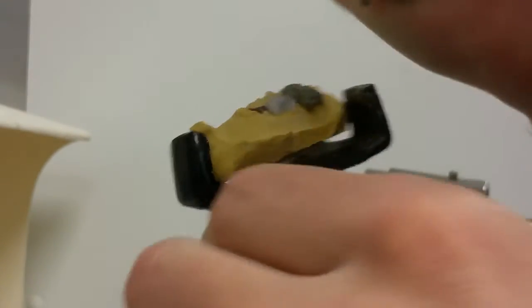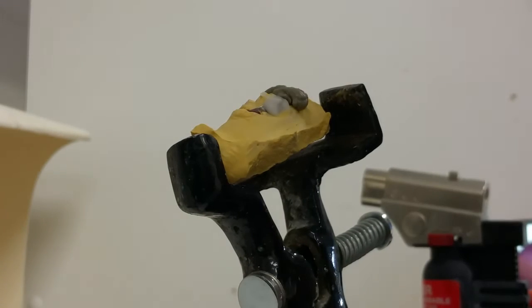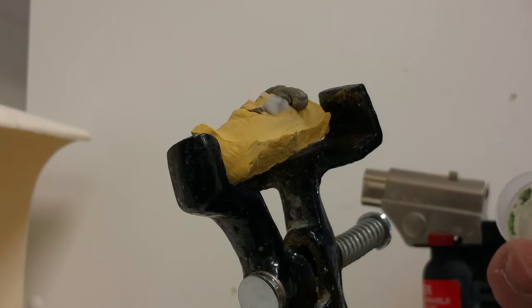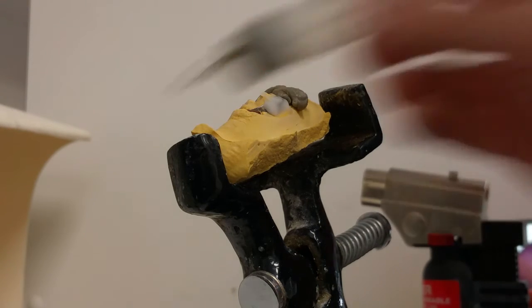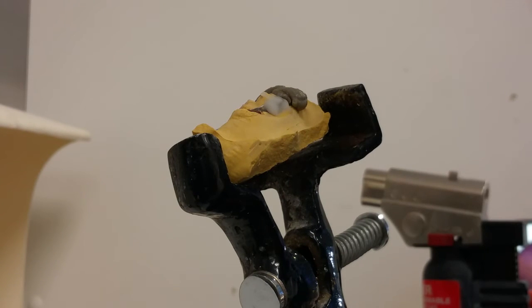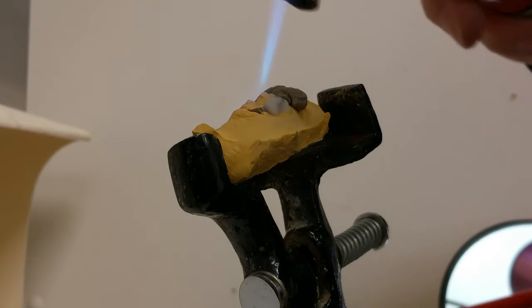The heat shield is very important. When I talk about the wire getting red, you want to put the heat shield where you don't have any flux because the flux also helps to knock down the heat.